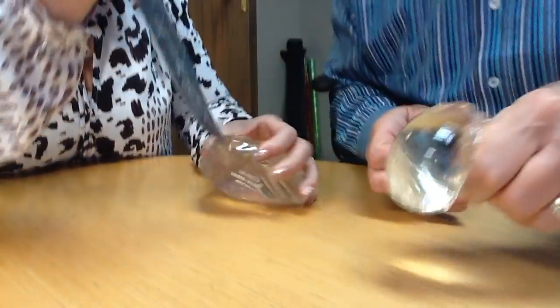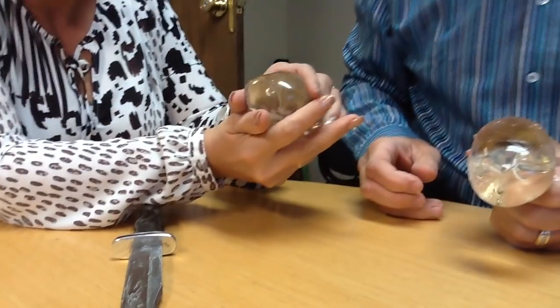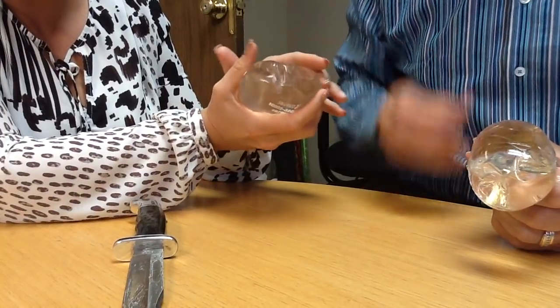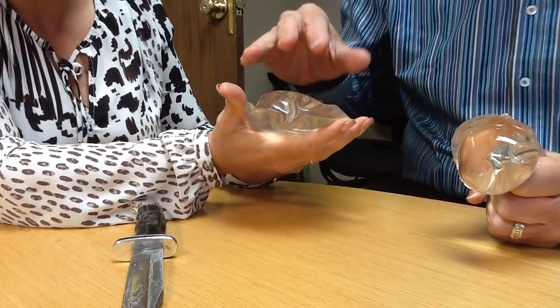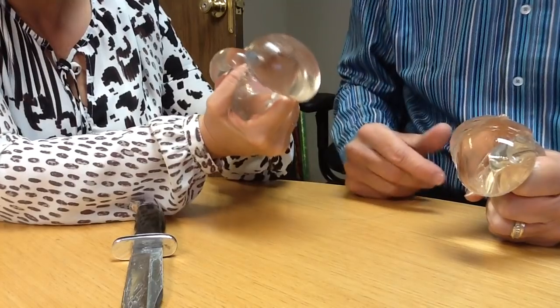Now let's try the gummy bear. With the gummy bear, we squeeze it out and then let go and it'll come back in — see how it comes back in? It's cohesive, it sticks together. So if you have a rupture with this one, it's going to come back in. We call this form stable — it basically maintains its shape even if it has a rupture.